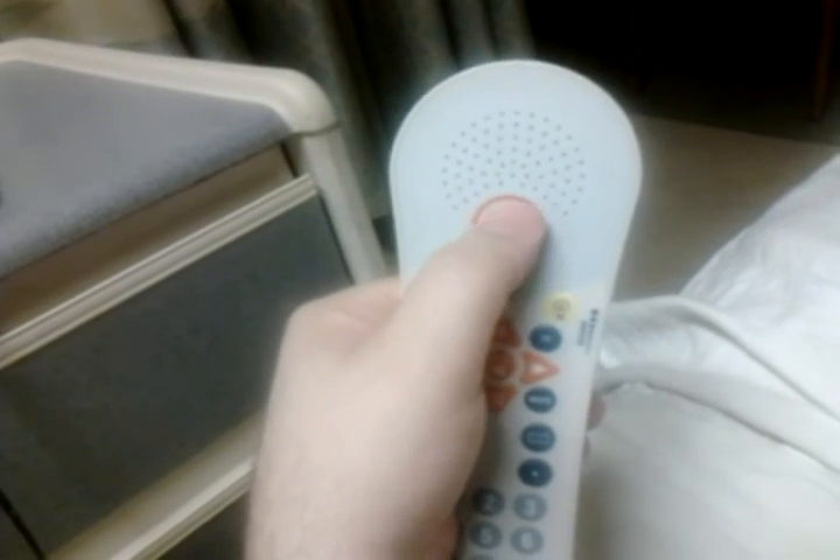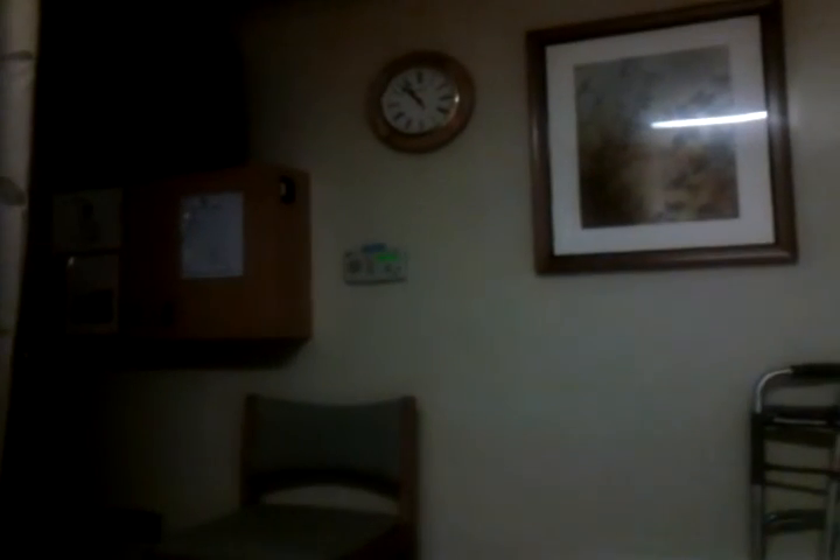Anyway, that is the call bell. Obviously I'm not going to summon the nurse for nothing, but when you press it, the light over here glows brighter, and that thing on the wall below the clock has a light on it that comes on — the screen on it gets a little brighter too. That is the hospital bedside remote call button.